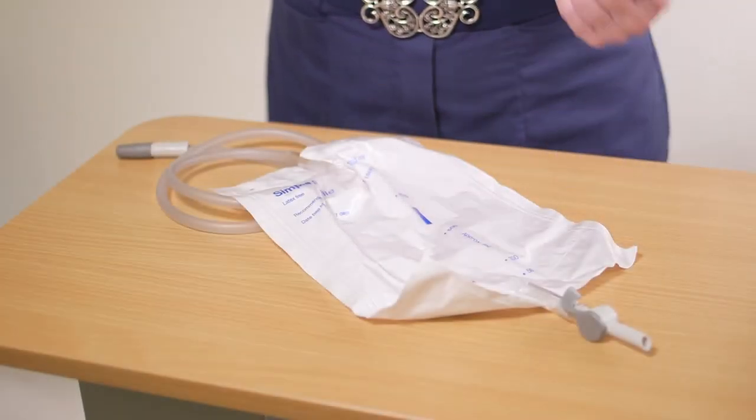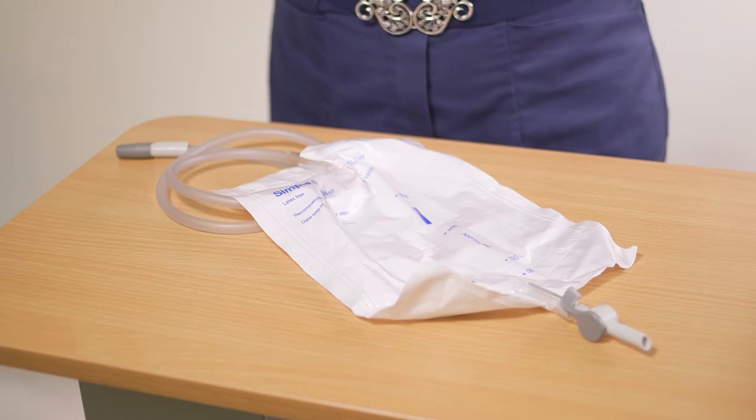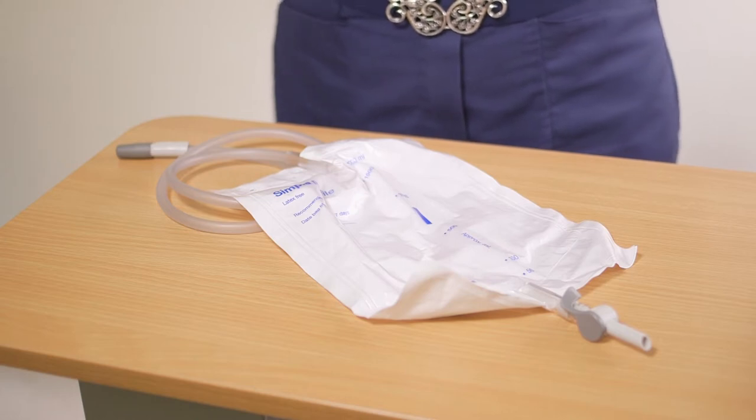This is the night bag. It is a larger capacity bag and can hold 2-4 litres of fluid. It is used post-operatively and as a night bag once you are at home.